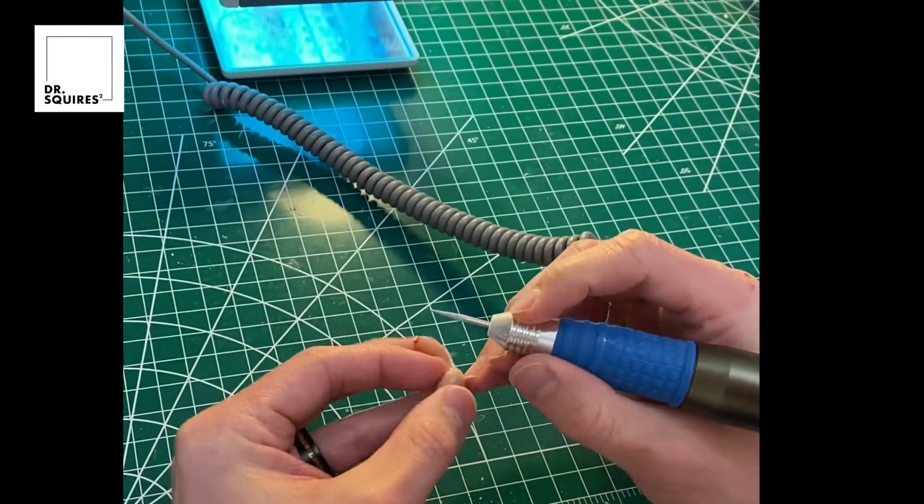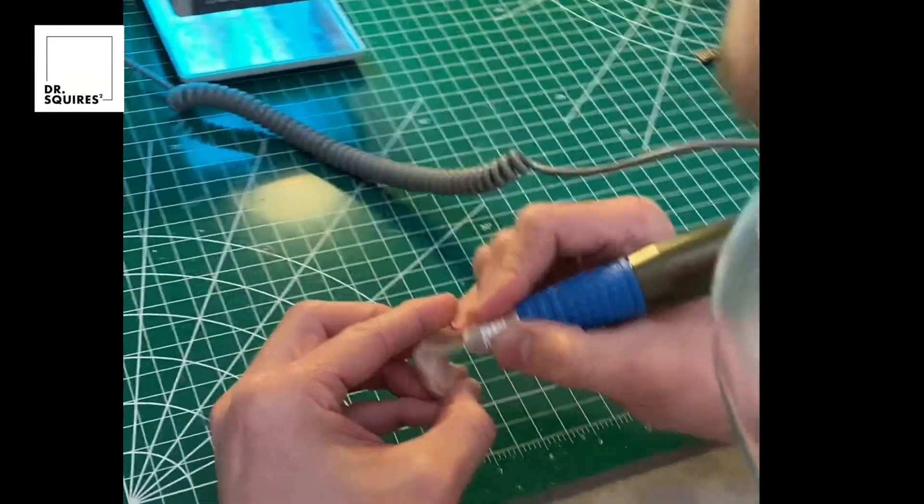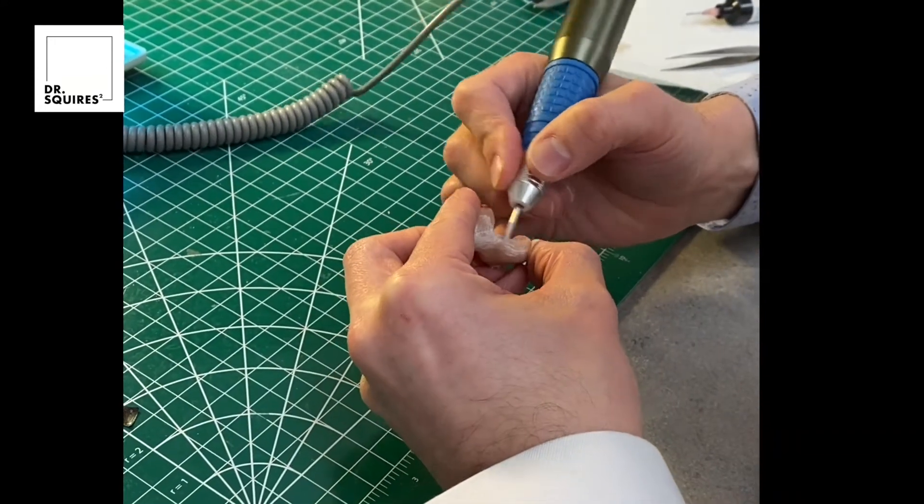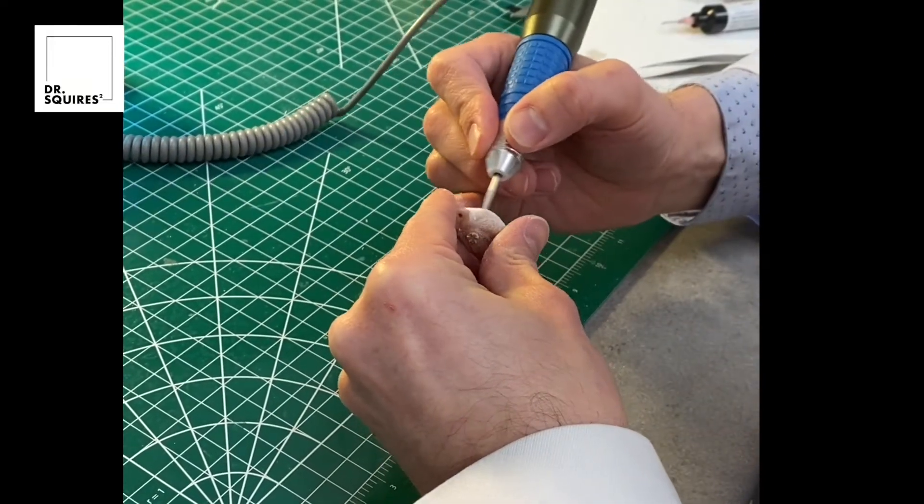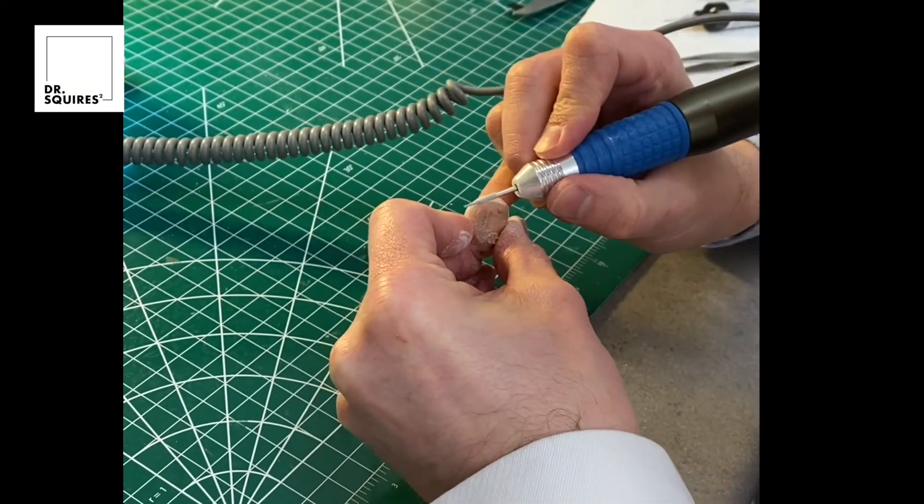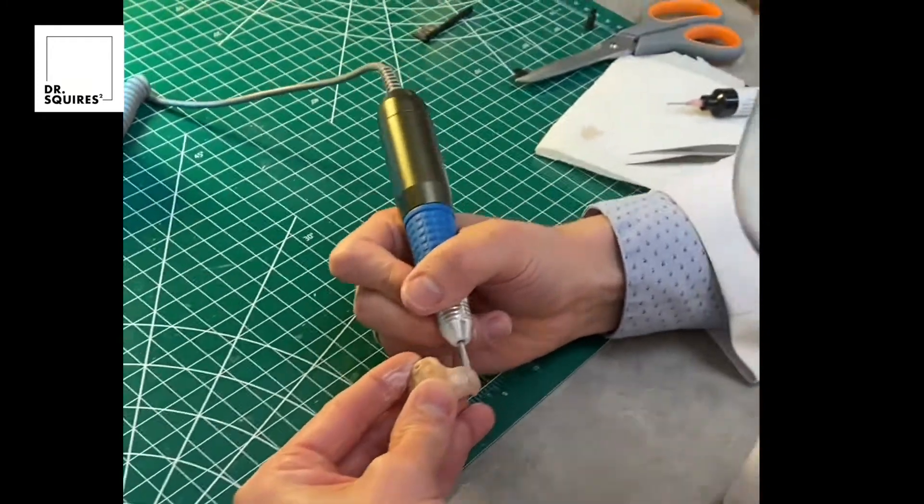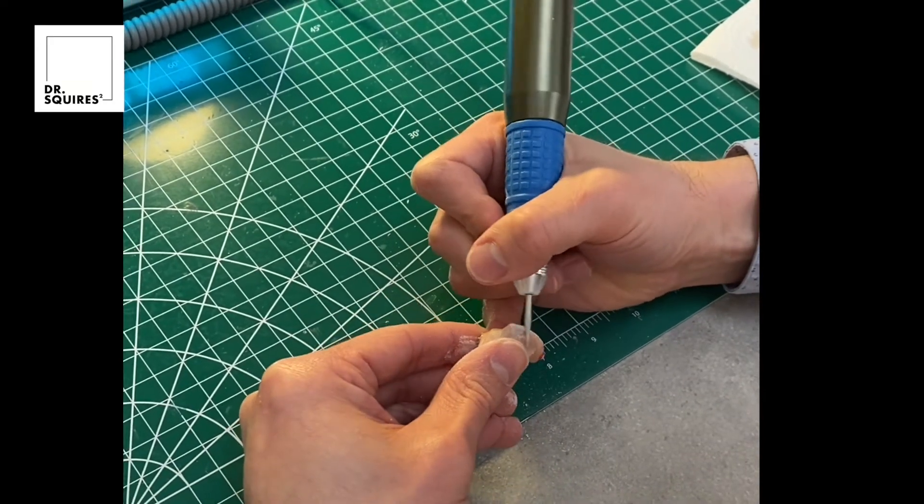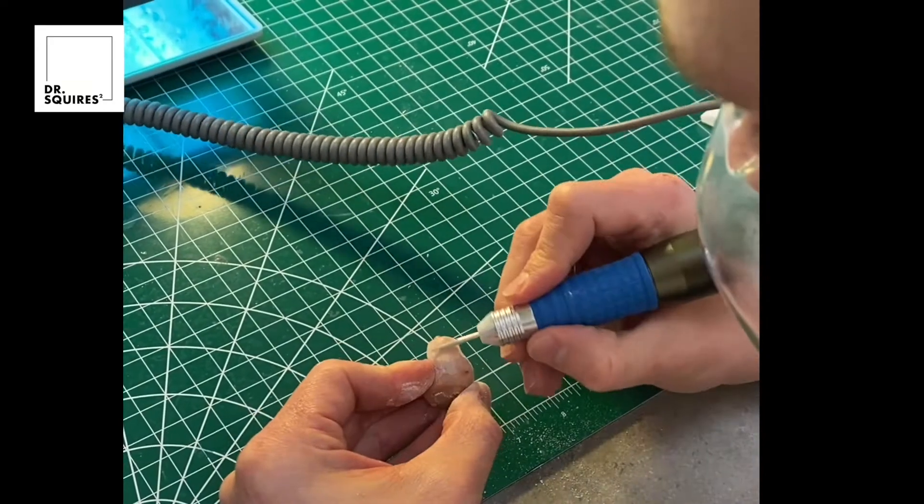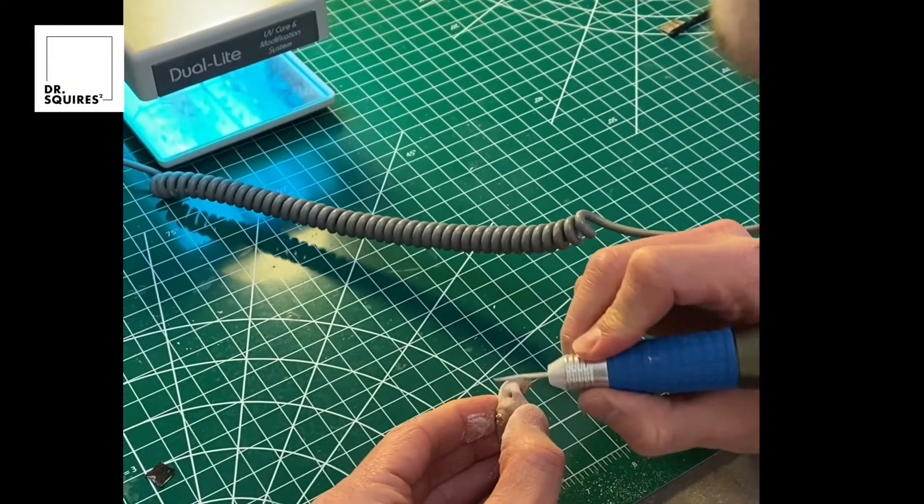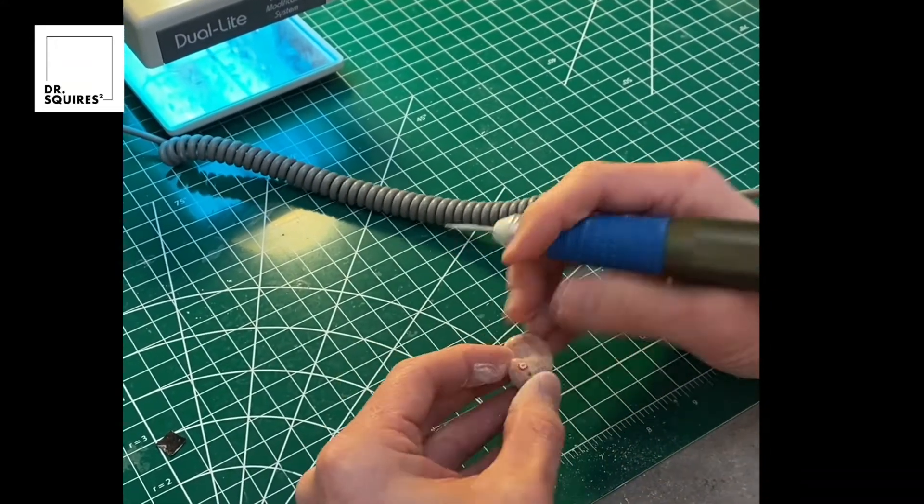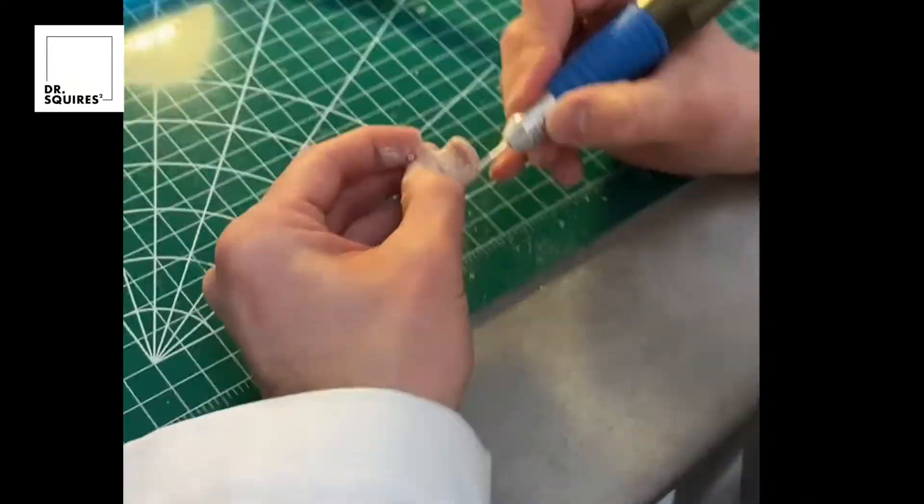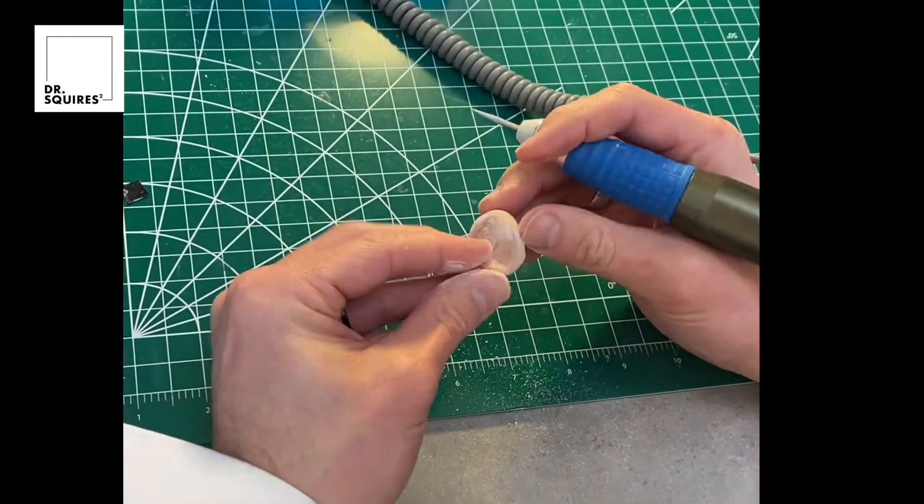You saw me remove the black piece of tape there, we're just covering up the manufacturer and serial number, we're trying to protect patient information. I am just removing the entire protective clear coat from the entire hearing aid. This is going to include the top layer of the repair that I just did. This will make the entire outside of the hearing aid feel like one piece, and then I will restore that clear coat here in just a moment. We're trying to protect any anatomical structures so that the hearing aid still has good retention.